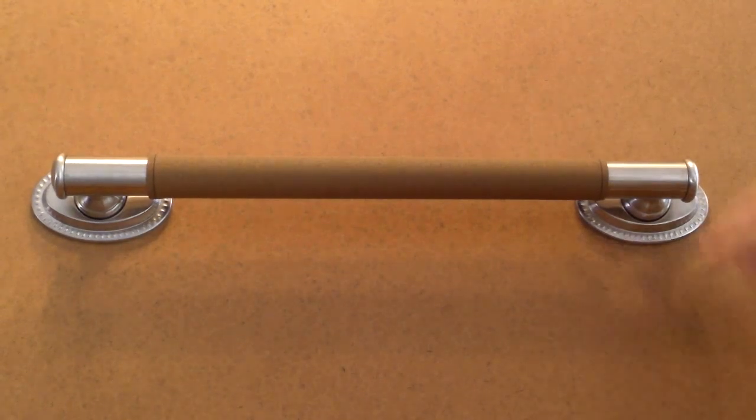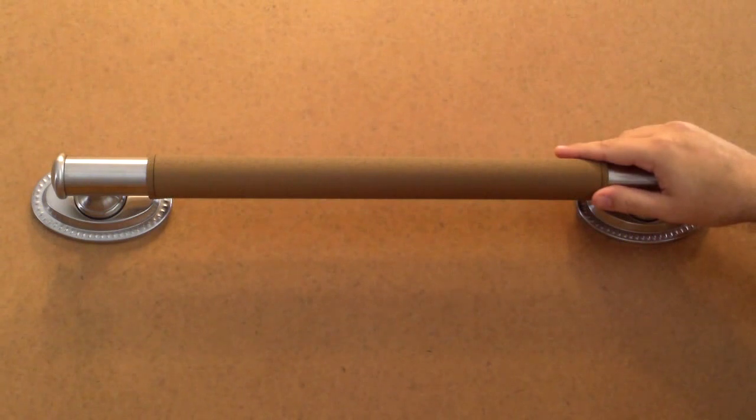So now we know we need to order a med grip that fits an 18 inch grab bar that is 1 and 1 quarter or 1.25 outside diameter.